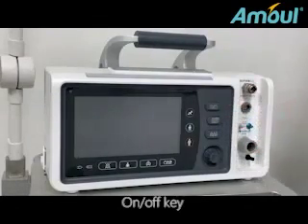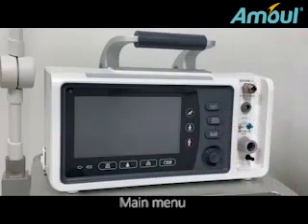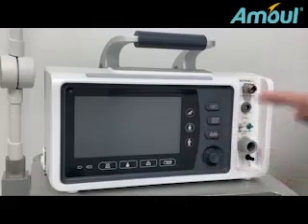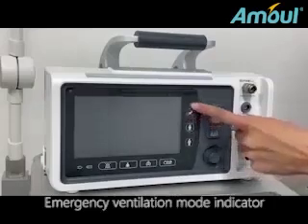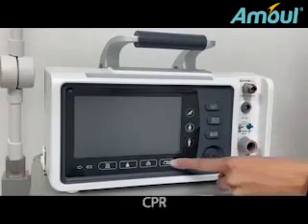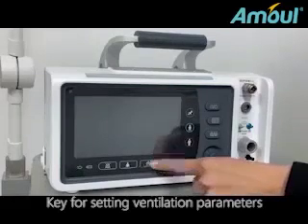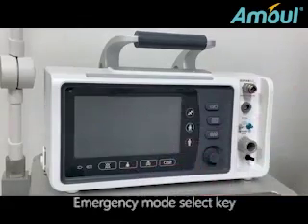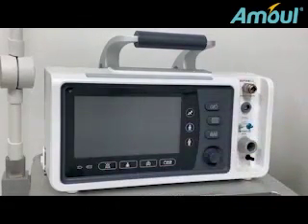On/off key. Main menu. Screen lock. Emergency ventilation mode indicator. CPR. Key for setting ventilation parameters. Emergency mode select key. Mute key for voice alarm.